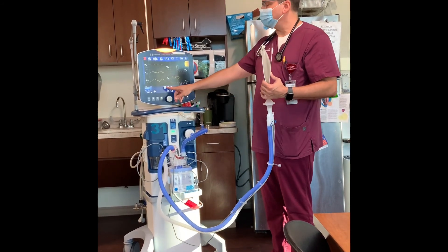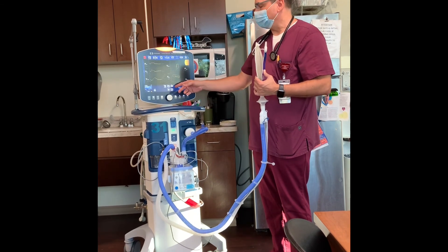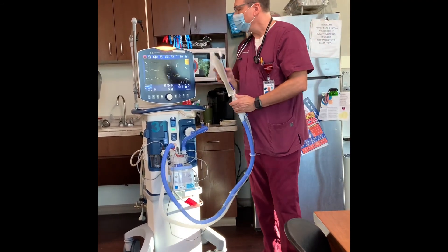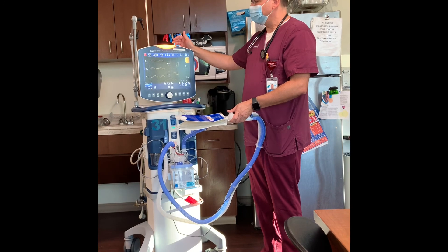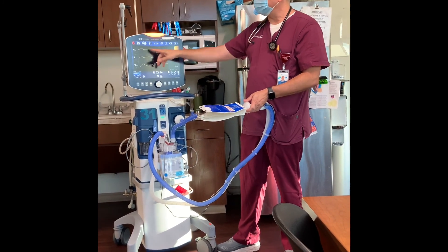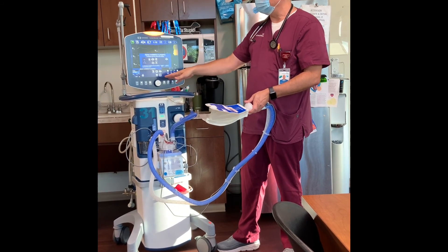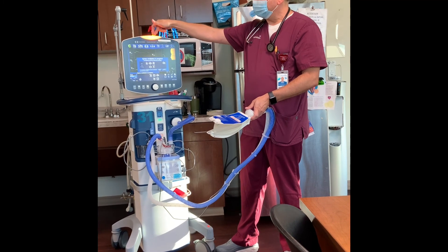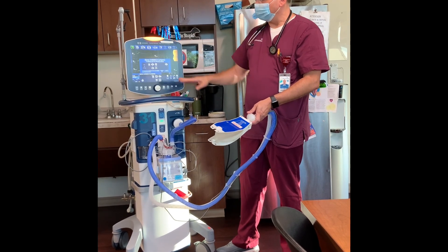To give report on pressure support mode, you would say: they're on pressure support of 10, PEEP of 5, and 100% oxygen. If the patient were to stop breathing, the ventilator will kick in and back up and ventilate the patient. If you see an alarm that says 'apnea ventilation,' call your respiratory therapist because this mode is no longer adequate and we'll need to switch back to assist control. It will be a medium priority alarm progressing to high priority, but the backup mode will ventilate the patient.